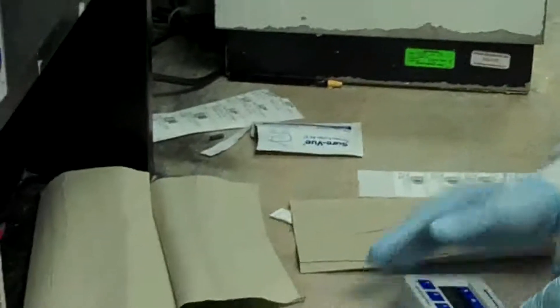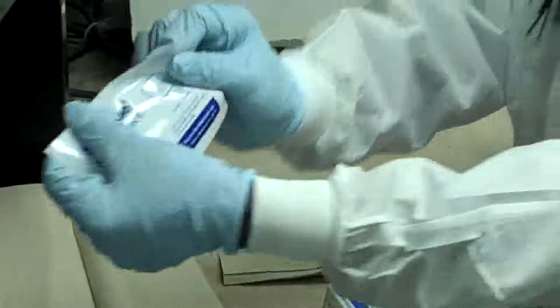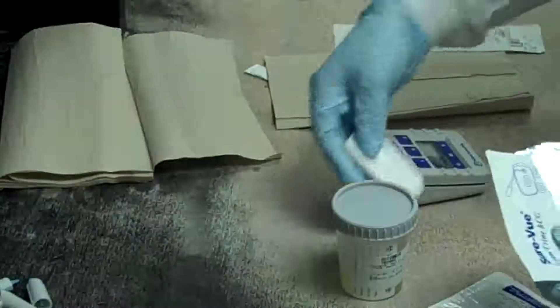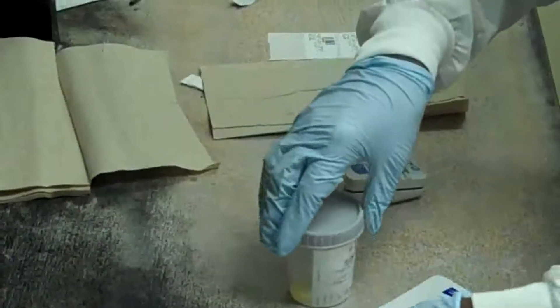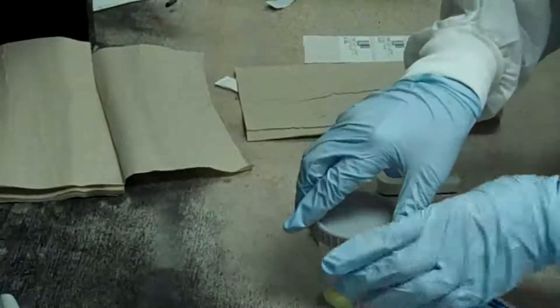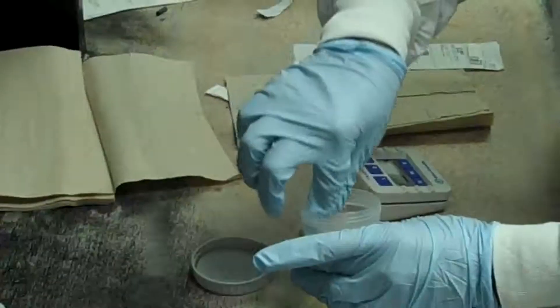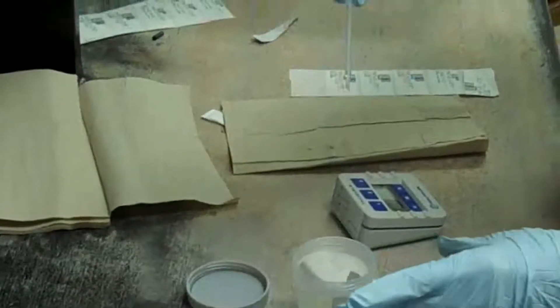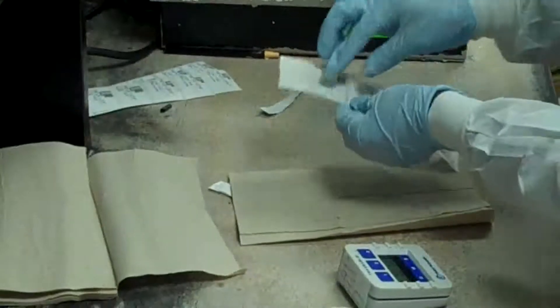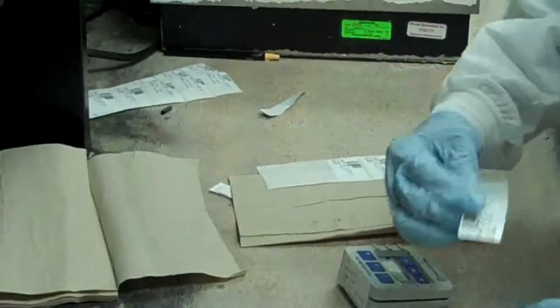Open the test kit. The test kit consists of the test device itself and a dropper. Label the test device with two patient identifiers — patient name and date of birth — or use the patient label.